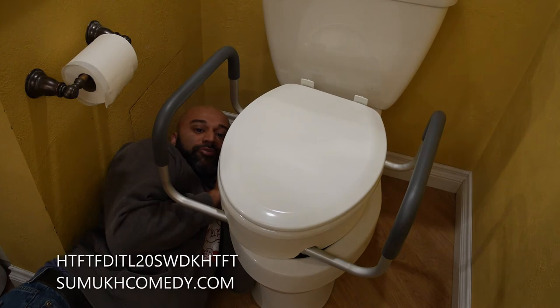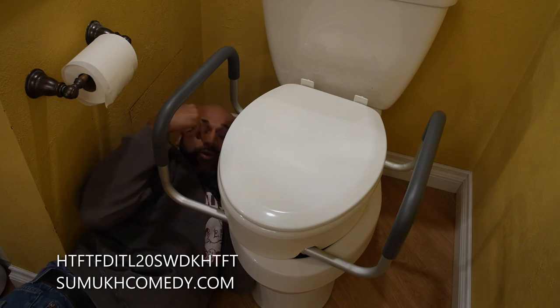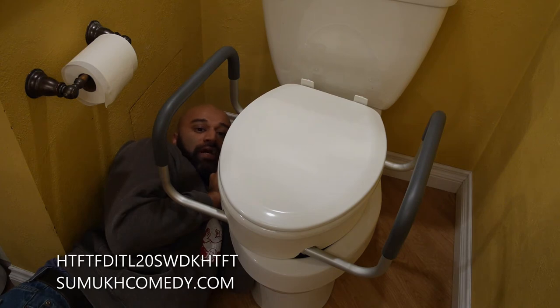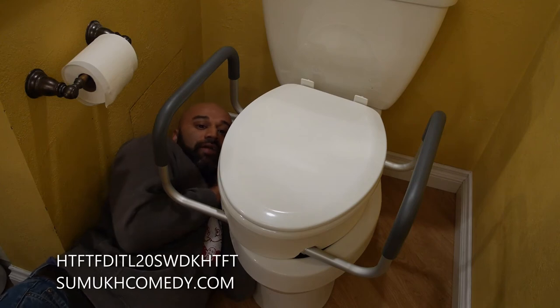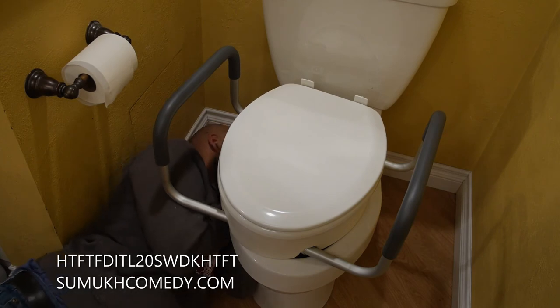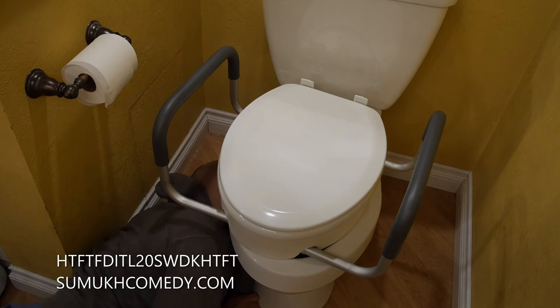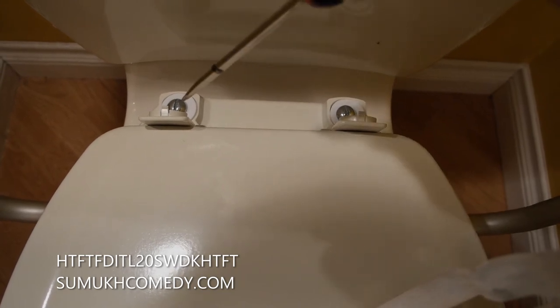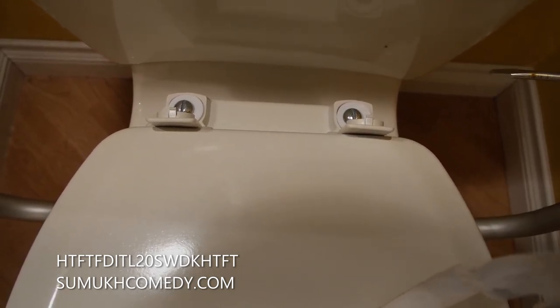These washers and wing nuts will be tightened on the other side of the screws underneath the toilet. I can tell you there's definitely a 170 pound weight limit on being able to get into the area underneath this toilet to put the wing nut and washer properly on. Cirque du Soleil made a version of it for toilets — I've just gone through and experienced it, probably filled with the music of the Bloodhound Gang. Using a flathead screwdriver, I went ahead and tightened both of these screws underneath with the washer and wing nut.